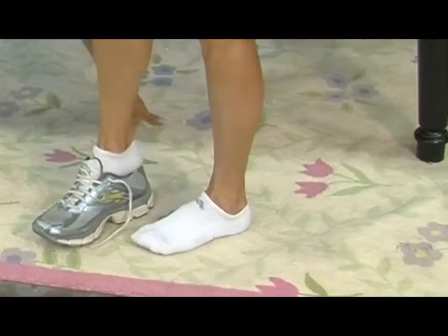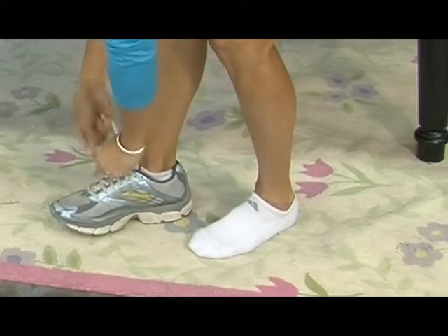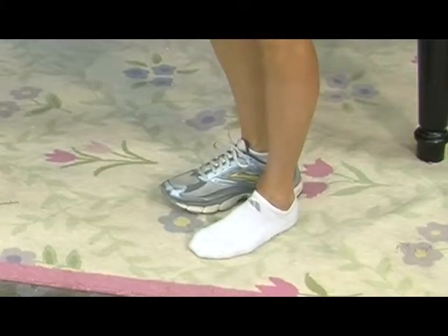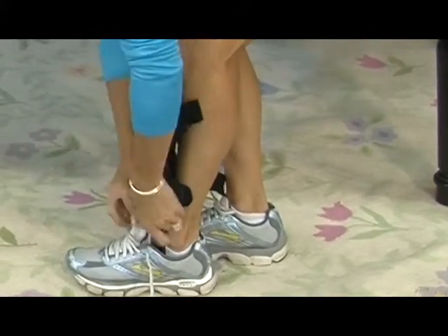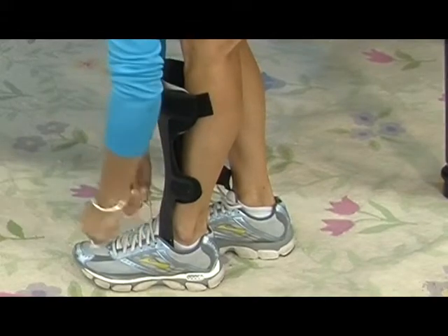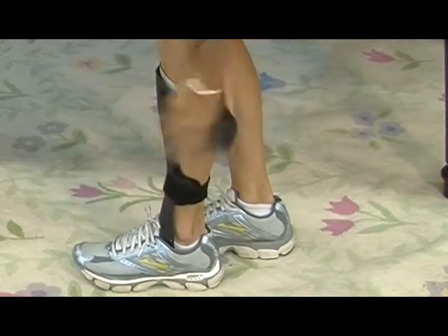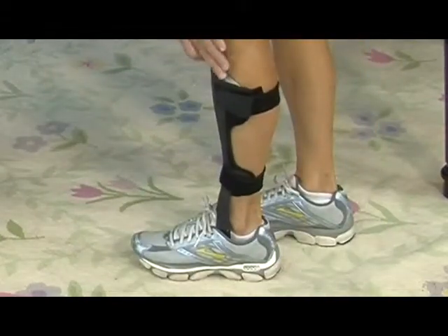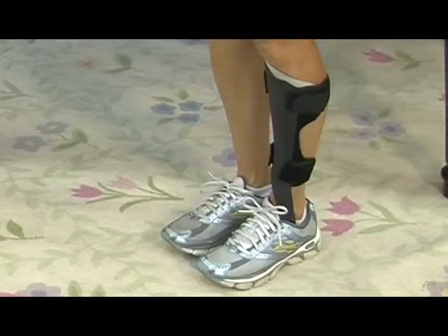We've got to see does it hold up when you're just starting your run? What about when you get fatigued? In a marathon you're going to change your form some when you get fatigued — so is it still in a good supportive position? We keep making tweaks because once we get your hip strength back to normal, your form is going to change a little bit, requiring some adjustment to either the orthotic or the position of the brace in the shoe. Then the final adjustment — where we built up the insert, all of a sudden I had less room where the strut hit my ankle and didn't have enough clearance. So instead of the small brace that fit me, we had to go up to a medium so that it cleared the insert better. We trimmed the footplate and trimmed the top down — so I'm now running in a medium versus the small we started with.